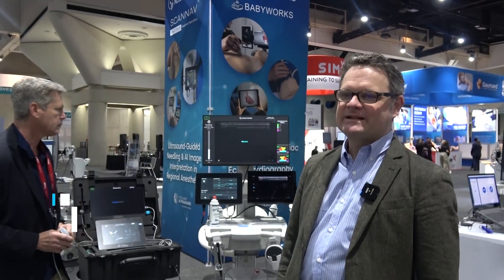Hi everyone, I'm Nick Sleep from Intelligent Ultrasound. I think this is about the 12th year that we've been at IMSH. We started off in obstetric simulation, do cardiac simulation, and also general POCUS ultrasound simulation.